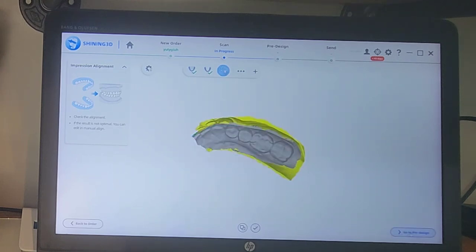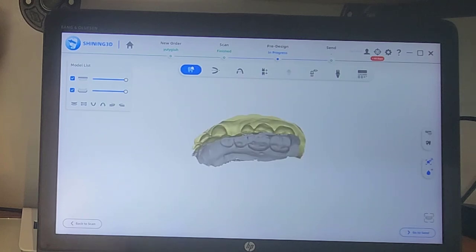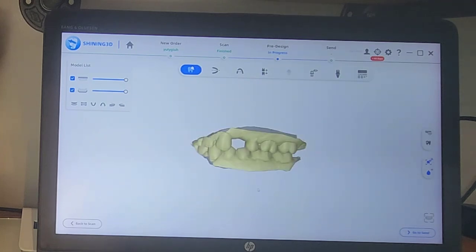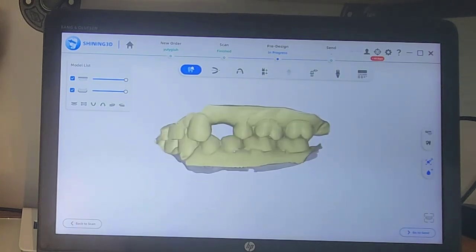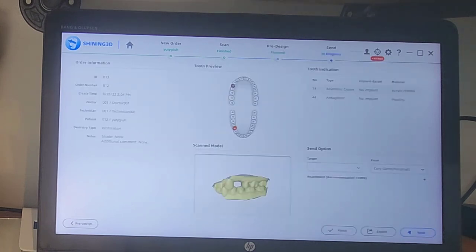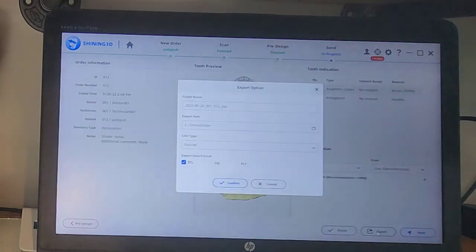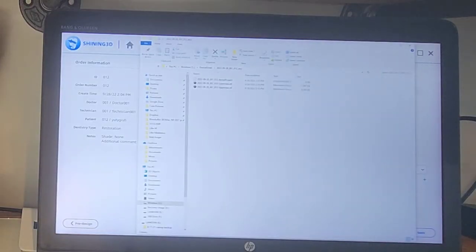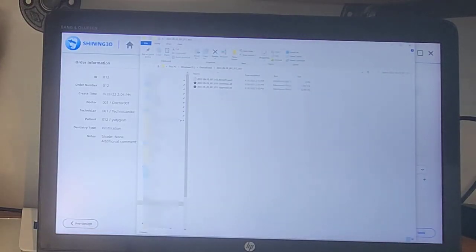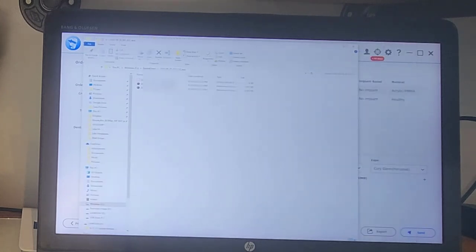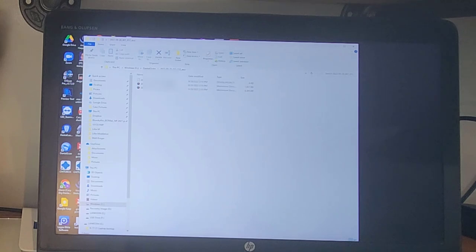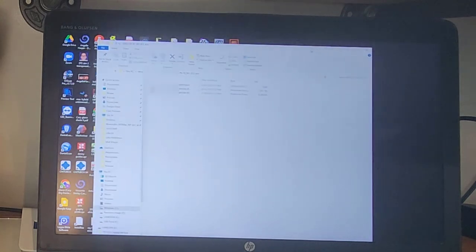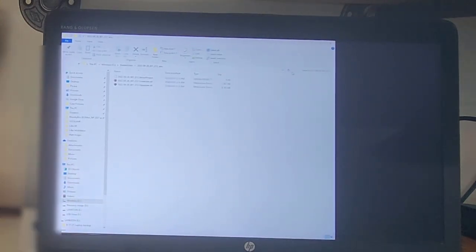So as a last step, I want to look at the bite. So one of the beauties of scanning a triple tray is like your bite's dead on. Unless you didn't have them biting during the scan, then it's always going to be correct. So we'll complete this. And now I'd click go to pre-design. Now if I was going to go into ExoCAD or something like that, I might mess around in this portion. But I really don't need to. Instead, I'm going to click go to send. And now just export these. And we're going to just do these as STLs. And here you have it. These are my upper and lower STL models. All right. So with that done, let's now, now that I can screen record, I'll pause this for a moment and then we'll show you the rest of this in Blue Sky.